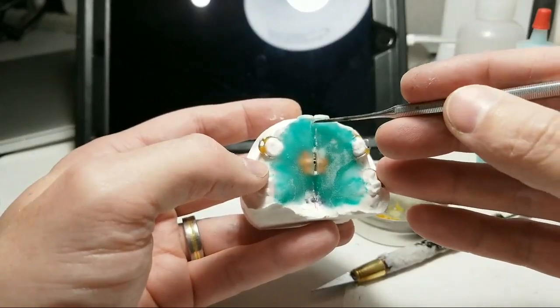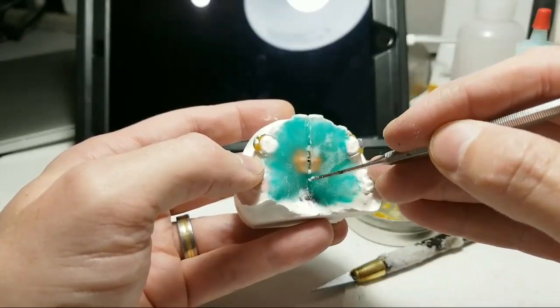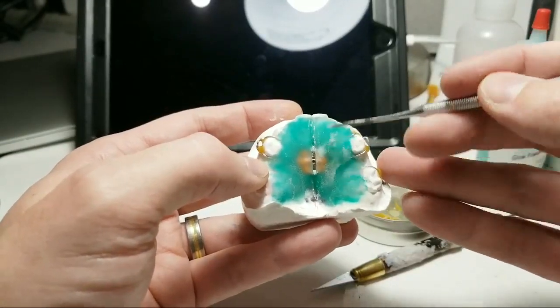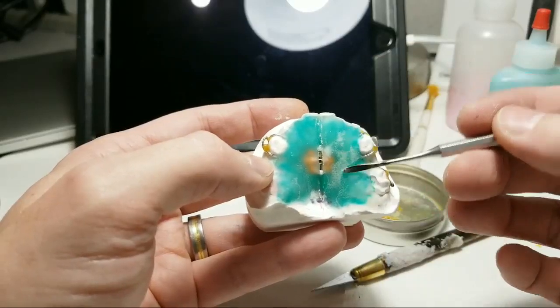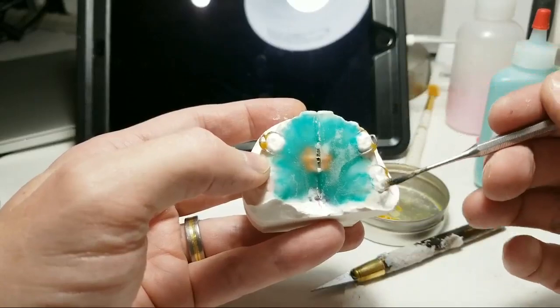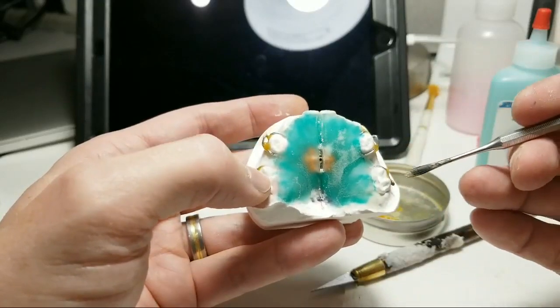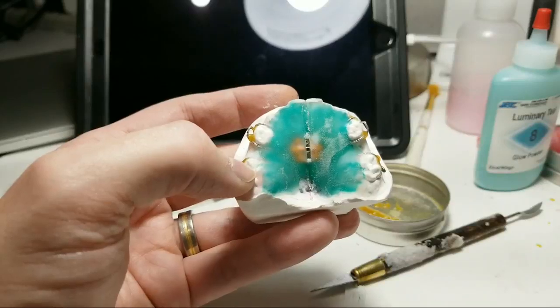Make your cuts here and here, and make sure you clear out all the acrylic. Open this a few turns, and that bottom part — you can just take out the white tab on the bottom, then close it back. Make sure you close it back. I've sent it back without being closed and the doctor said it doesn't fit. So I had to close the screw back down and send it back, and then it fit. Open this up after you've cut and cleared the acrylic, and that lower tab part will come out. Alright, that's it.